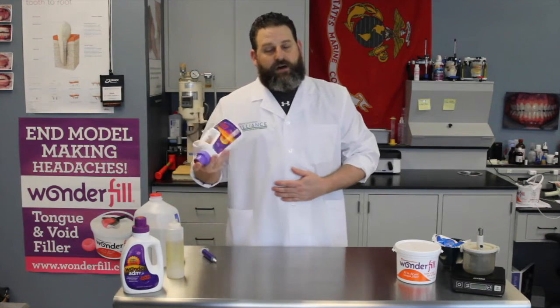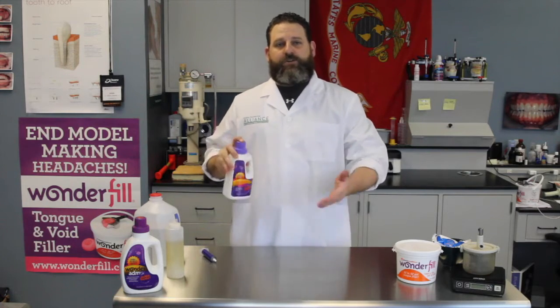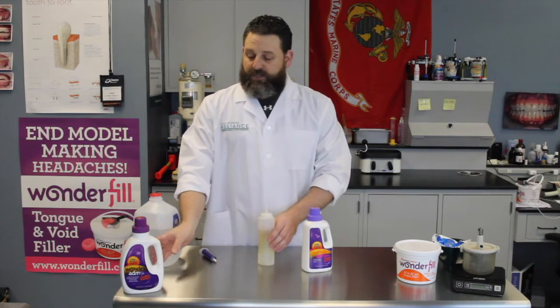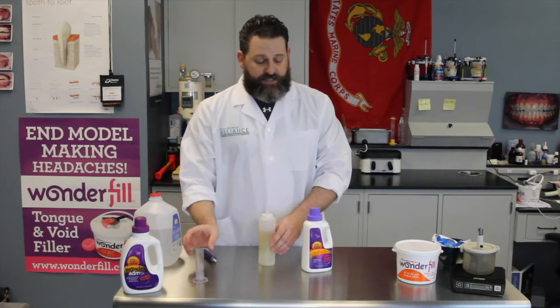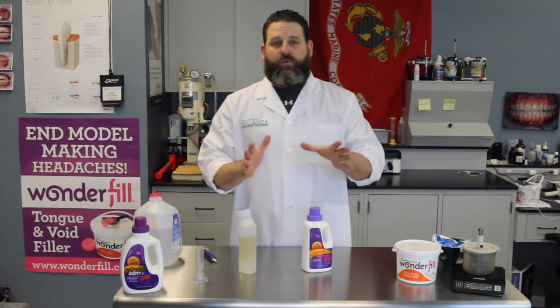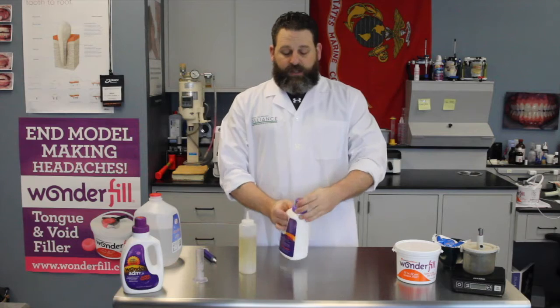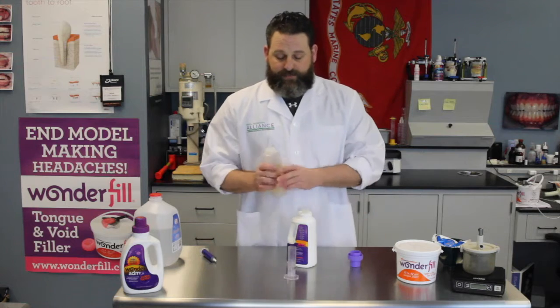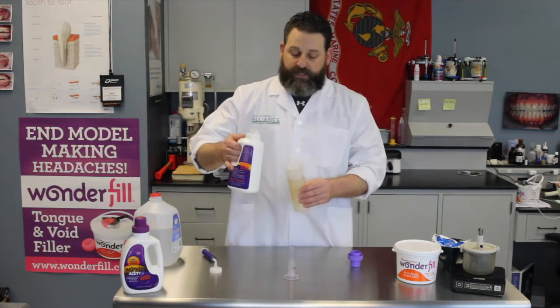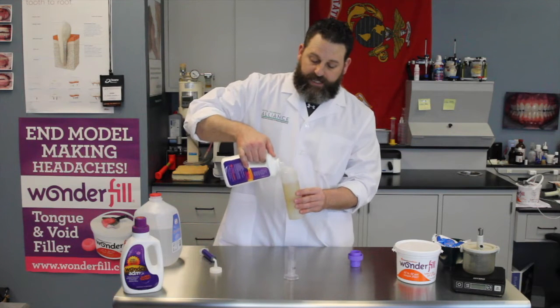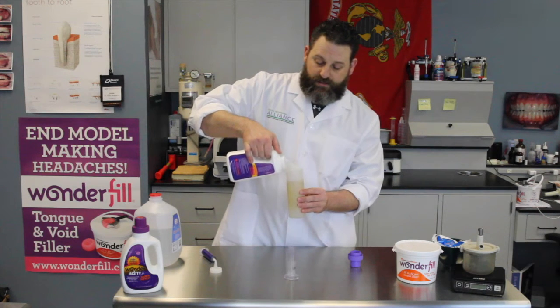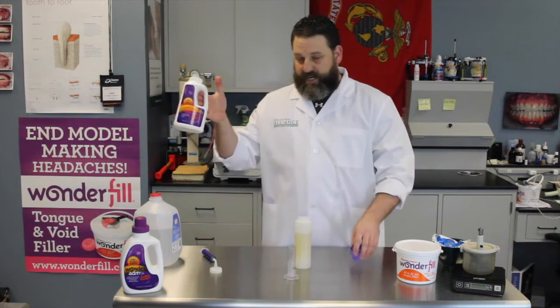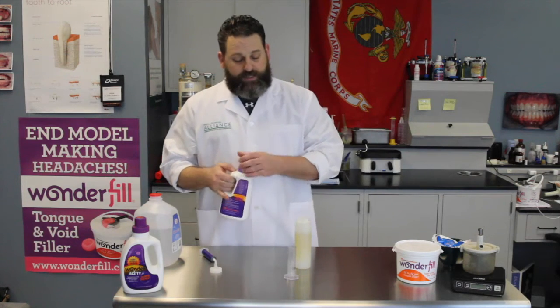So now that we have the AdMix all in the container all shaken up, what I'm going to do is get a ketchup dispensing bottle because we're also going to utilize your graduated cylinder. Sometimes when we're trying to get the right powder water ratio for our models, the large nozzle on this might not be as adequate as using the ketchup bottle. I'm going to put it in my ketchup dispensing container.